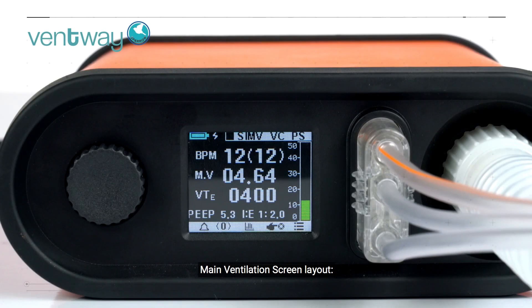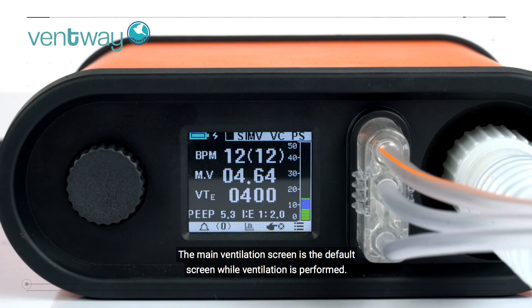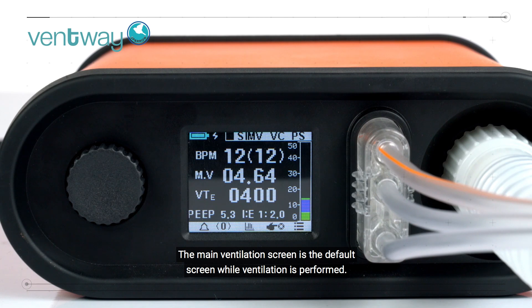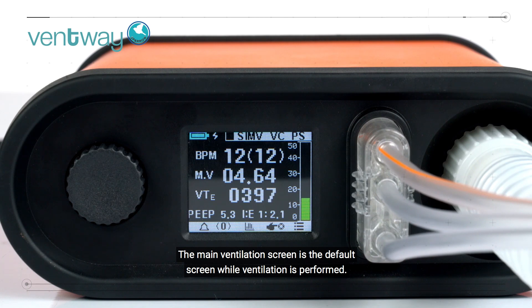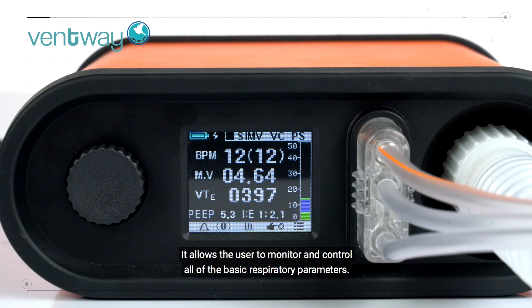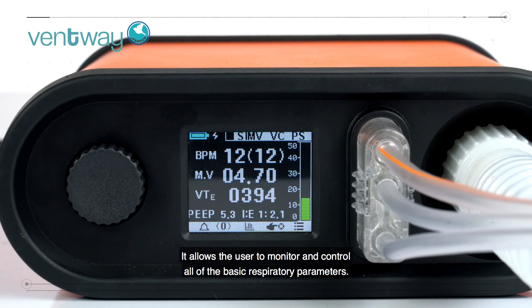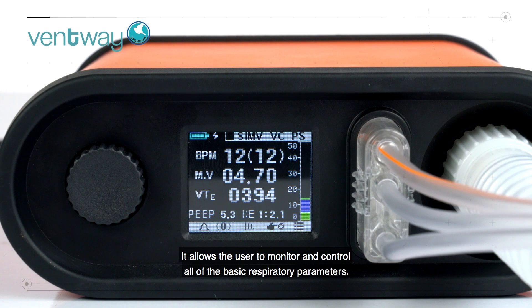The main ventilation screen is the default screen while ventilation is performed. It allows the user to monitor and control all of the basic respiratory parameters.